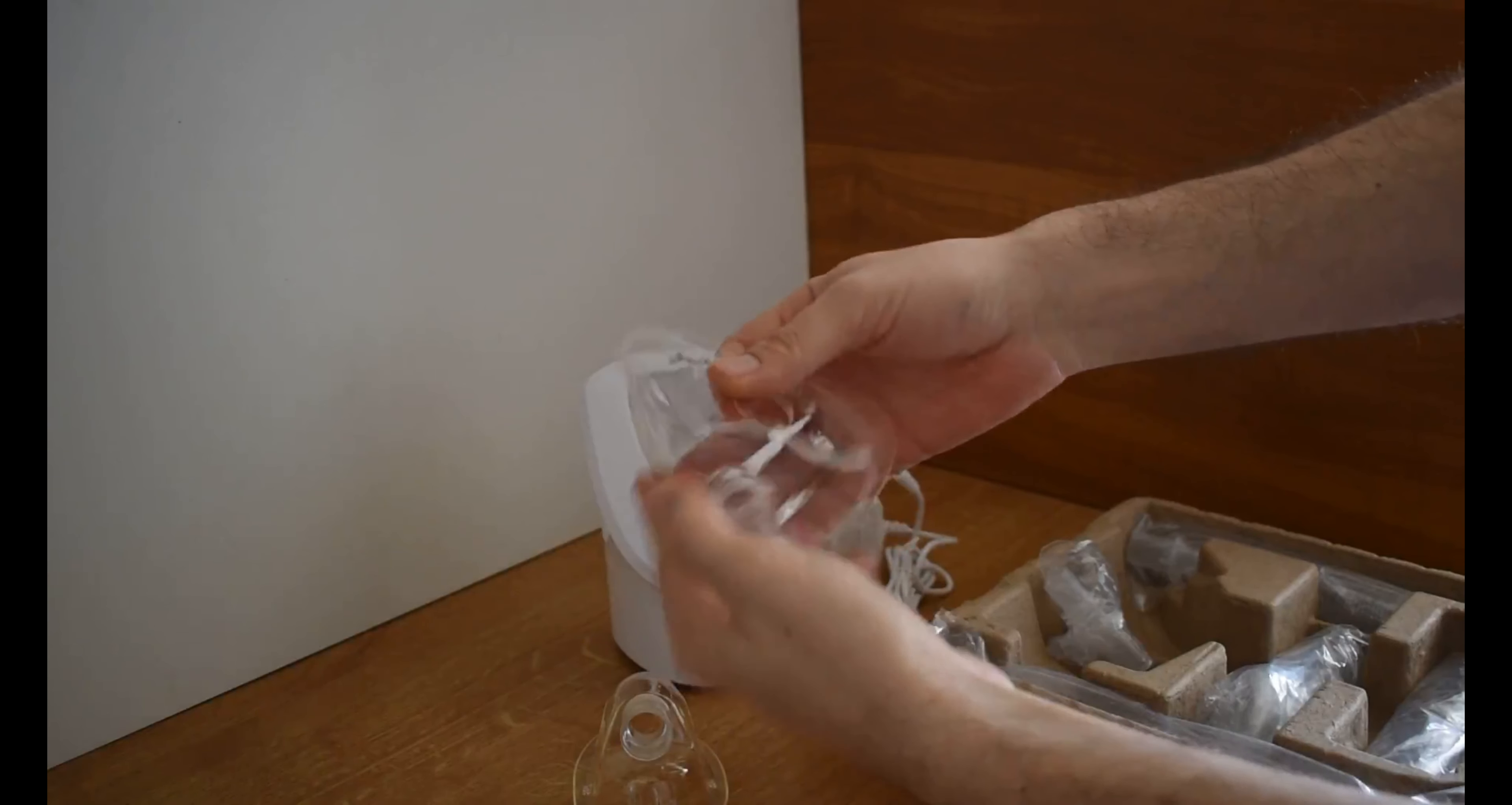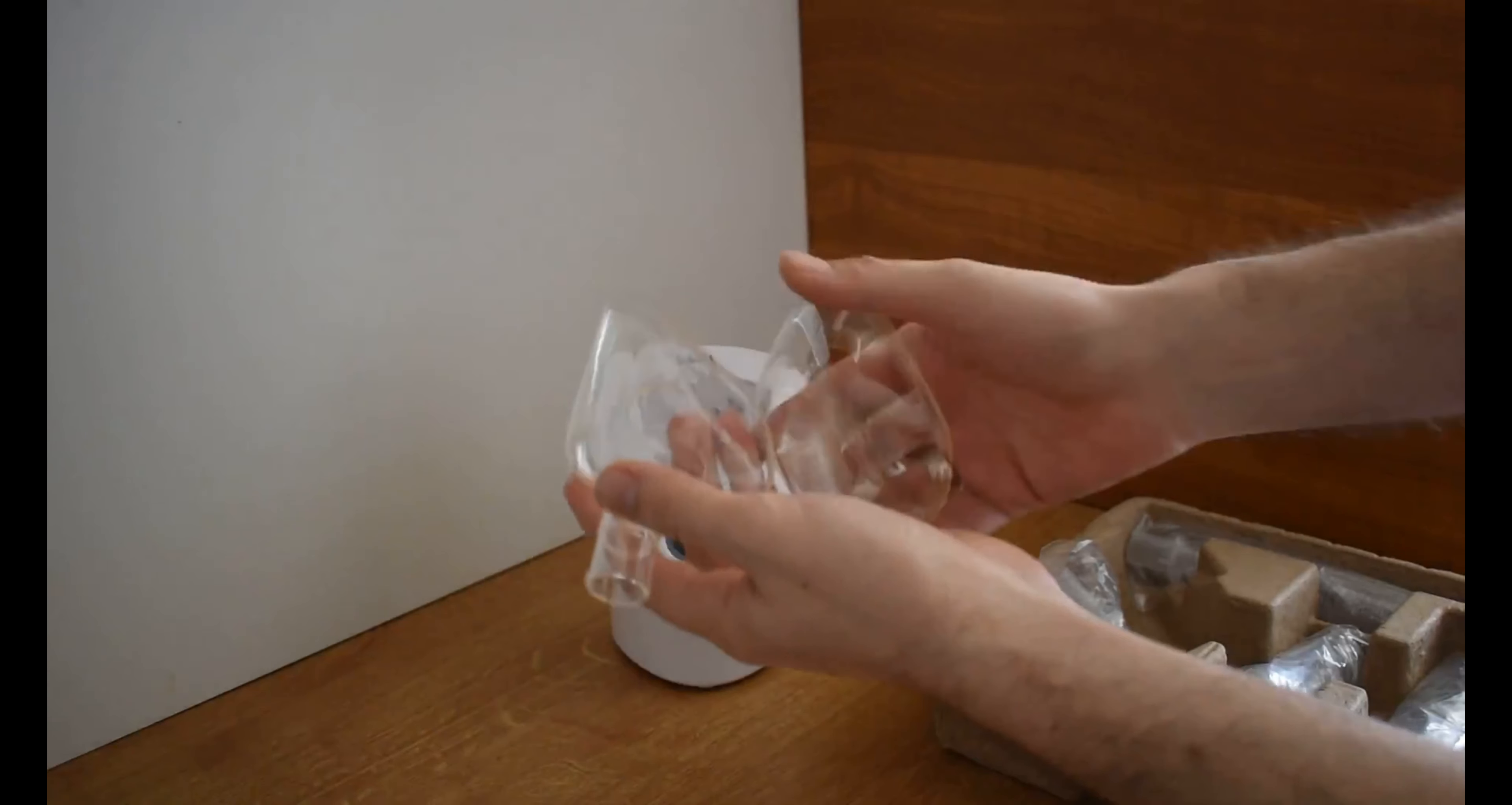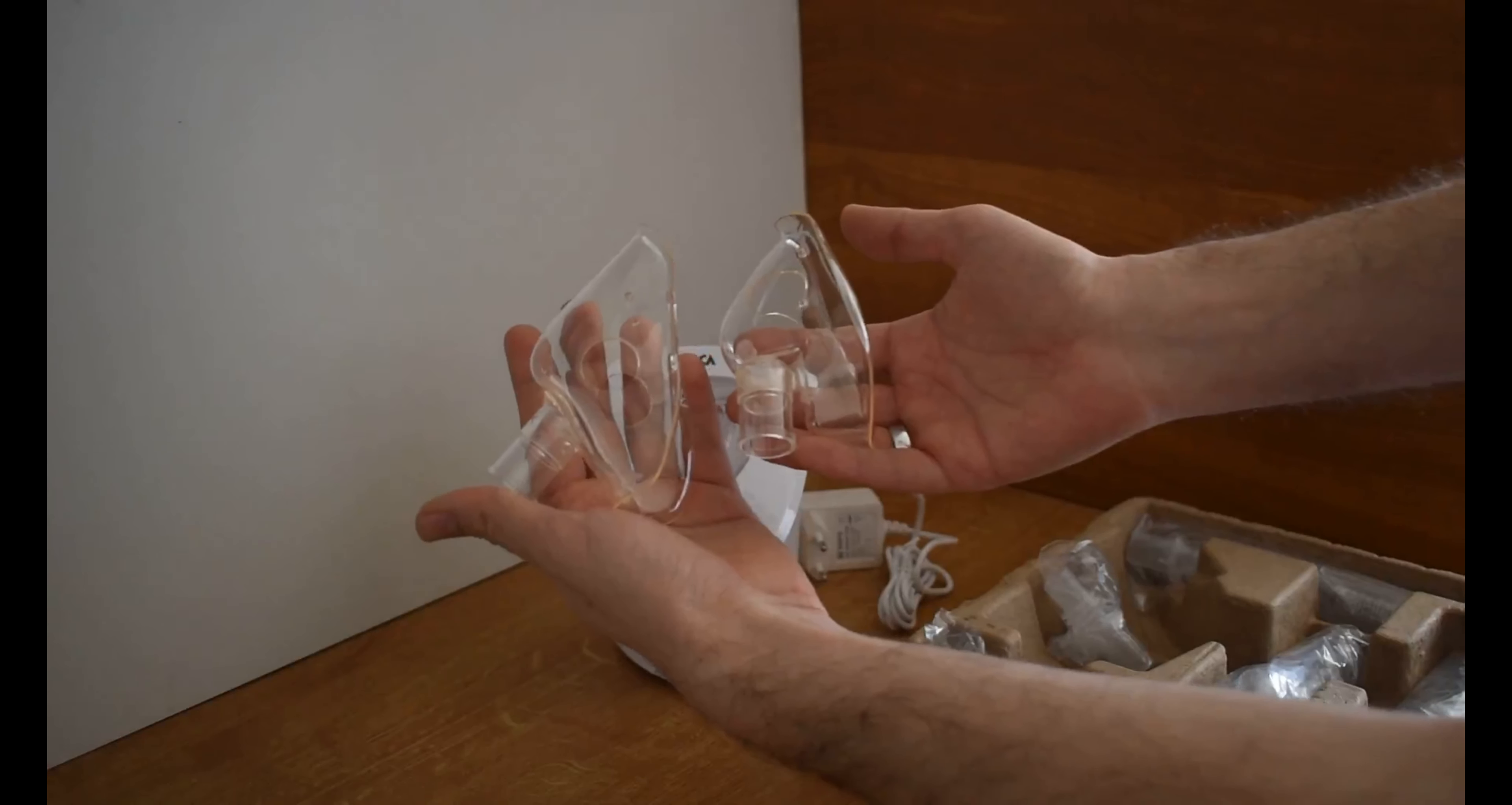Let me show you the comparison between the two, I mean the size how it looks like next to each other. On the left side is the adult one, on the right side is the children one. So as you can see it's a smaller one.